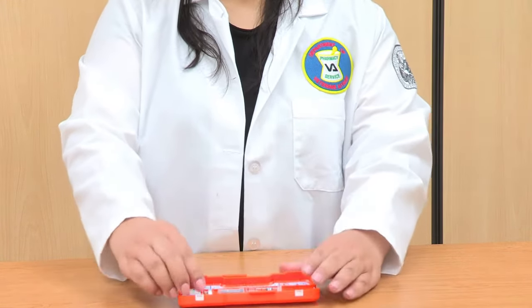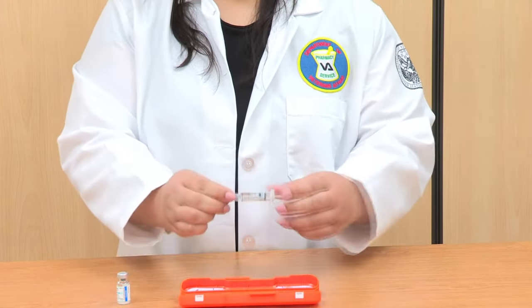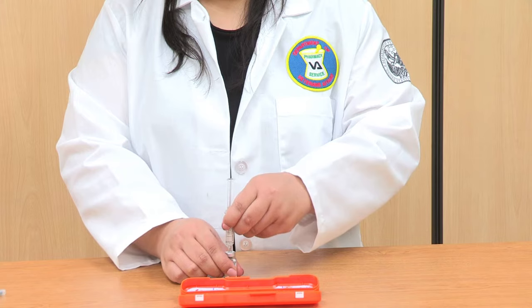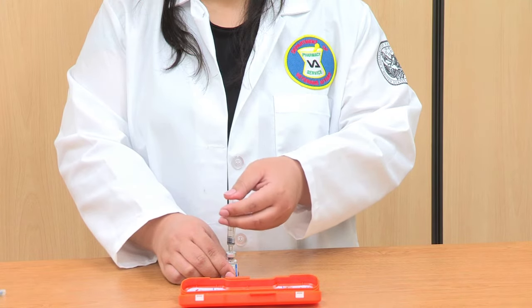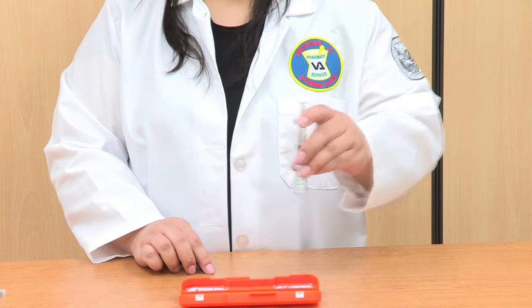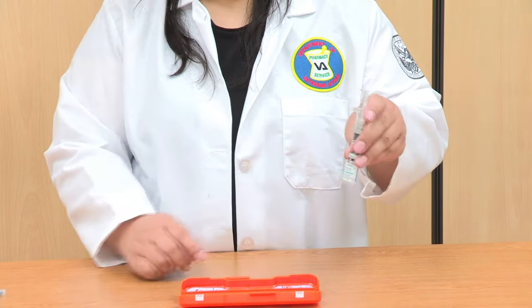Pick up the vial containing the dry glucagon powder. Using your thumb, flip the cap off the vial. Set the vial down on a flat surface. Pick up the syringe. Remove the cap covering the syringe needle, and be careful not to accidentally stick yourself. Insert the syringe needle into the rubber stopper on top of the vial. Push down on the syringe plunger handle to inject all the liquid into the vial. Without removing the needle from the vial, pick up the vial and syringe with one hand. Gently swirl the vial until the dry powder glucagon is completely dissolved. The solution should be clear and colorless. Do not use it if it's cloudy or if you see particles in the solution.